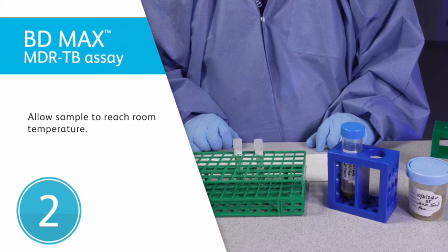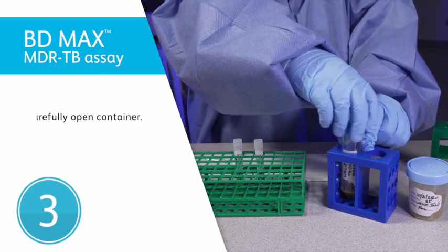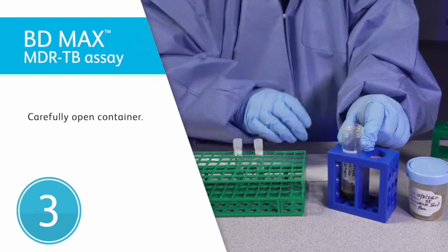Second, allow the sample to reach room temperature. Then, carefully open the lid of the container, being careful not to spill.